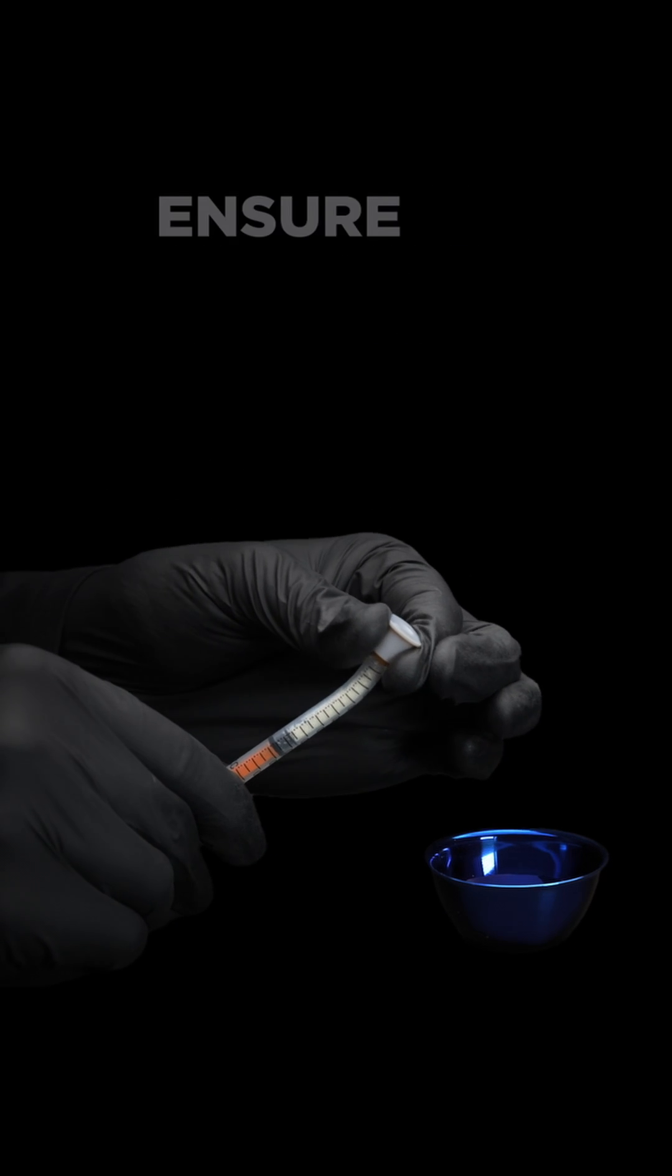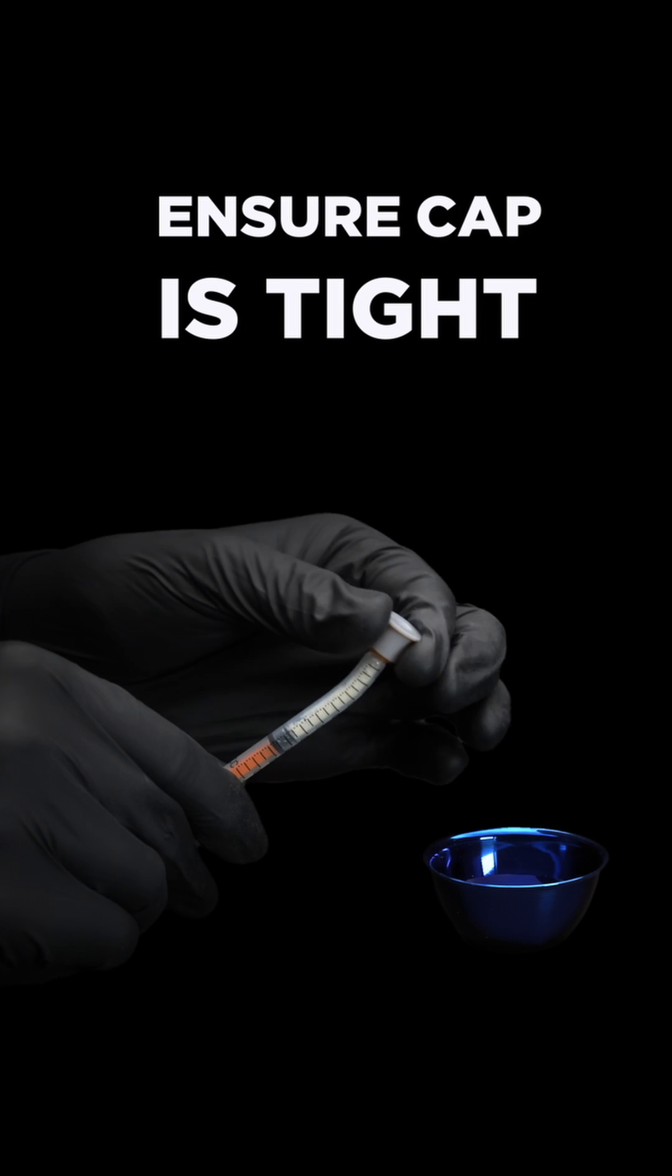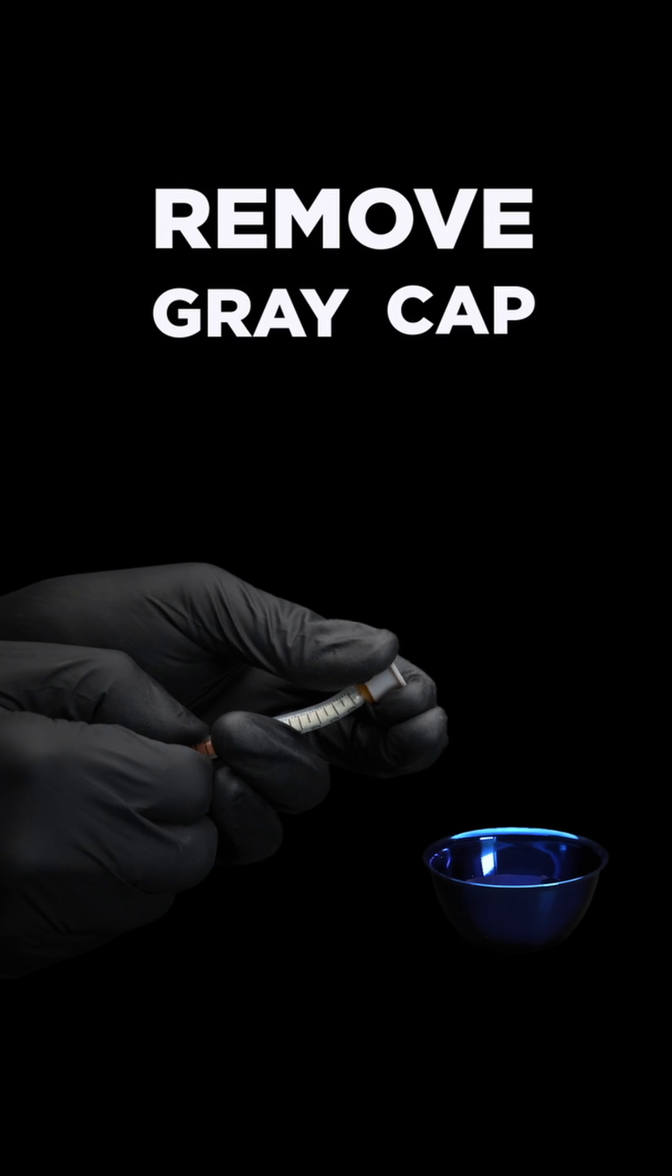Firmly squeeze the gray cap and screw clockwise to ensure it is tight. Pull the gray cap off and discard.